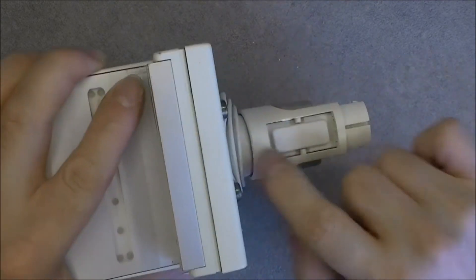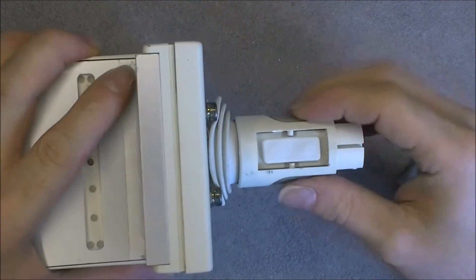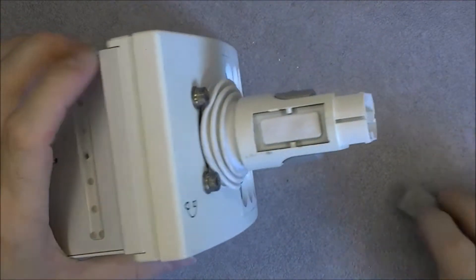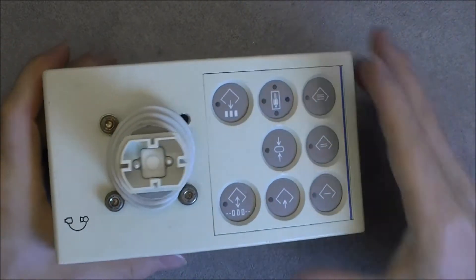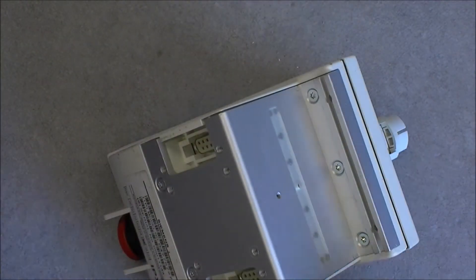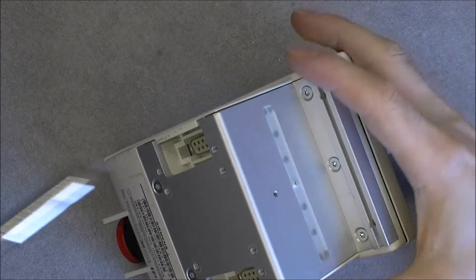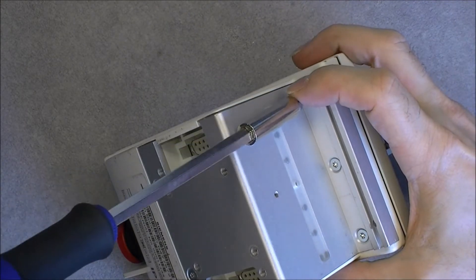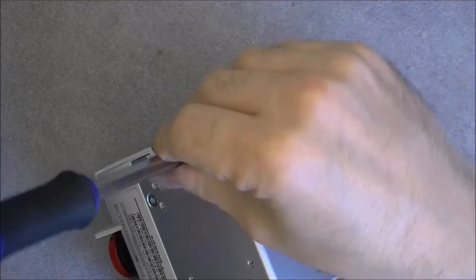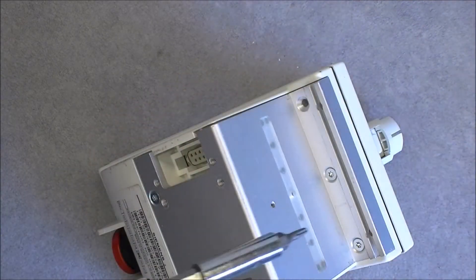It looks like all the contacts in this are completely enclosed in rubber. Interesting. I wonder if it will be possible to remove this plastic piece and have a better look inside. For now I will undo the bottom.